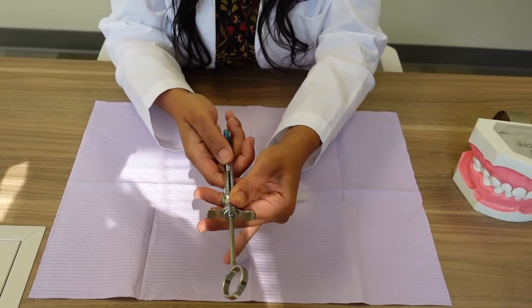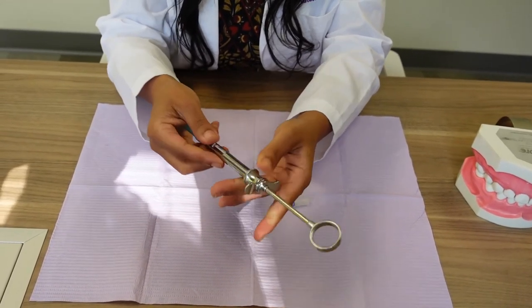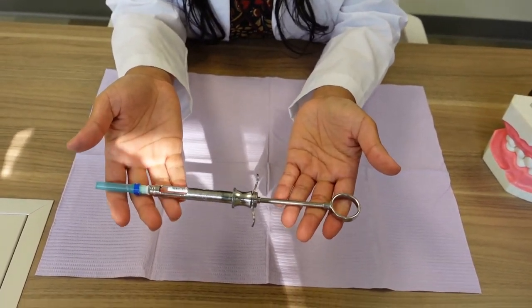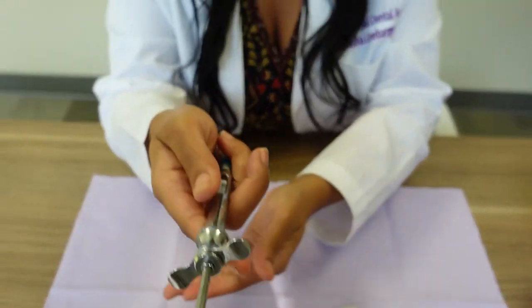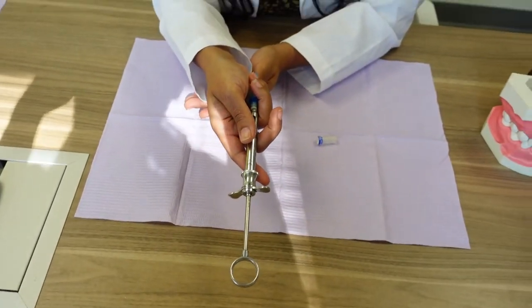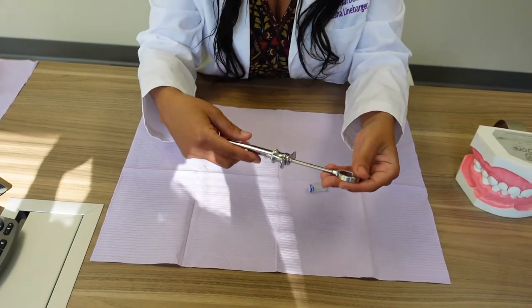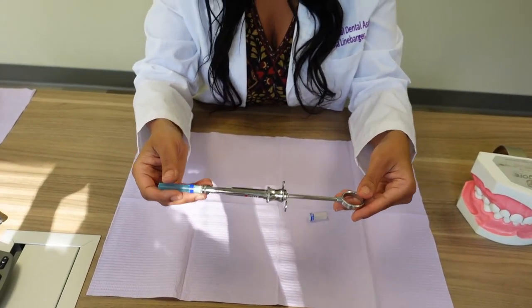It's like you're doing this motion, this motion. So that's how you actually set up an aspirating syringe and that's how you actually hand the aspirating syringe to the doctor. All righty, now that is wonderful. So we're going to move on to some more videos. I hope you enjoy.